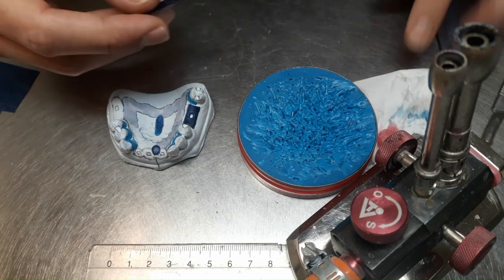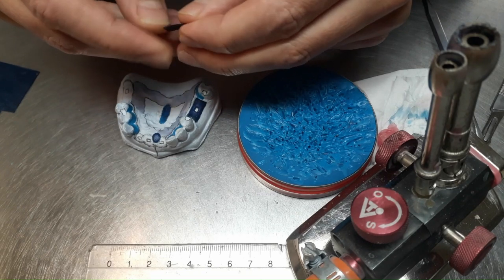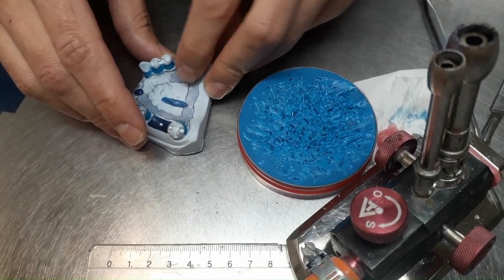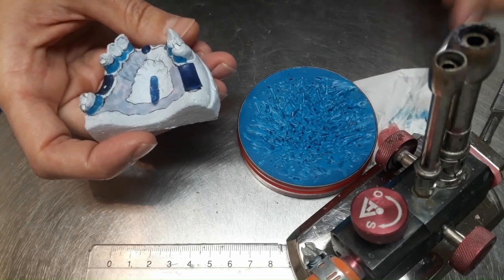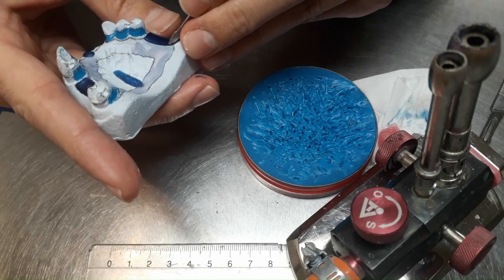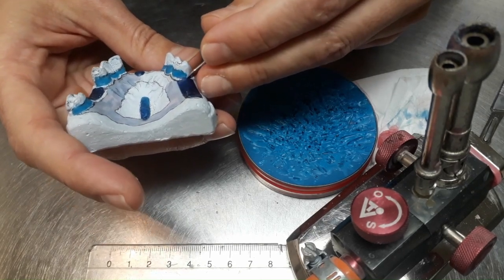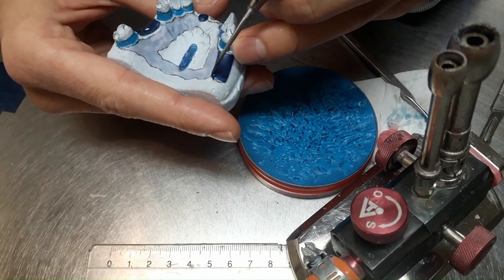Now this is for the lateral region, for the crests. You see, it's doubled. That's 0.8, just to give enough space for the acrylic resin to go under the shape of the pattern of the saddle and to be able to fix the artificial teeth with the metal framework. So here I want to have a distance because I want the acrylic resin to go under the metal framework. I didn't isolate the model in wax. We did that at the partial acrylic resin, but here I don't want that. I want the wax to adhere to the model. Of course, when I want to create the final denture and I will place this on this very model, then I will have to wash the wax. That's okay. But now I want to fix it thoroughly to the model.